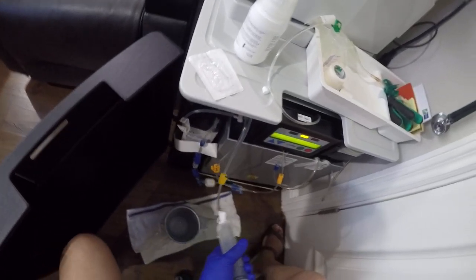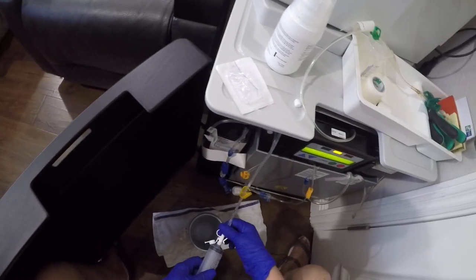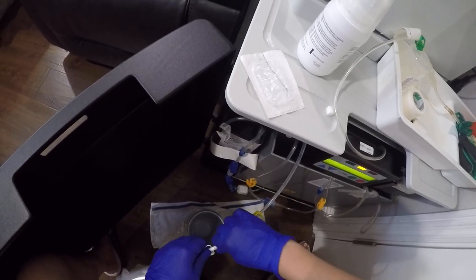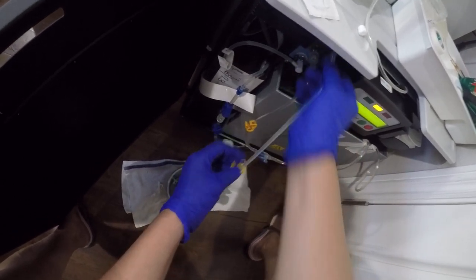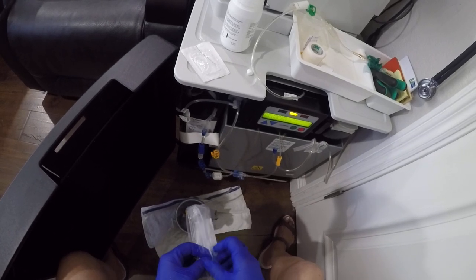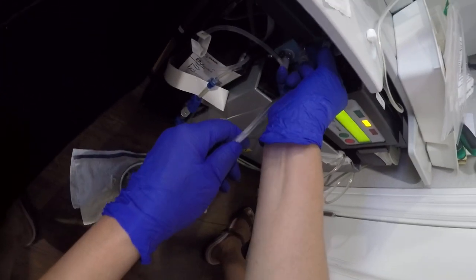Okay, so here's the last one. With the last one just unplug Mr. Peanut. Once a month you also change the drain line. I have a spare drain line here — if you don't have the connector to the machine, the drain line that comes with the pack, then you can ask your clinic to provide you one.